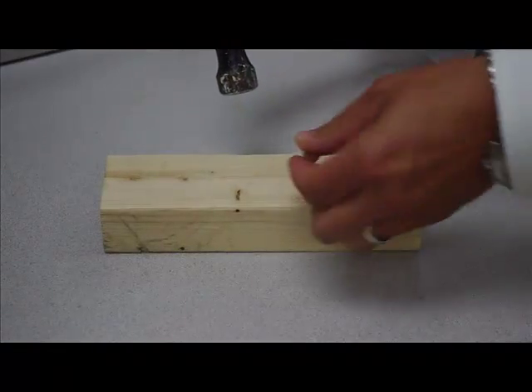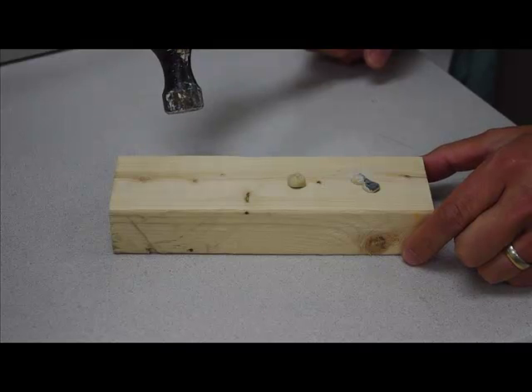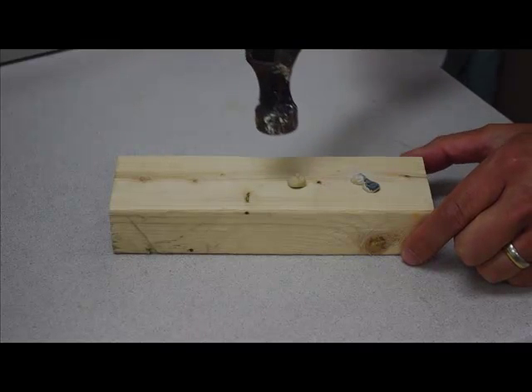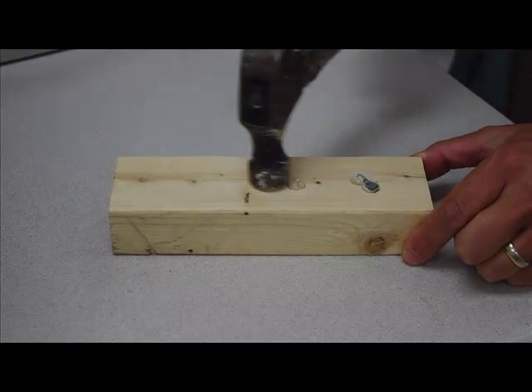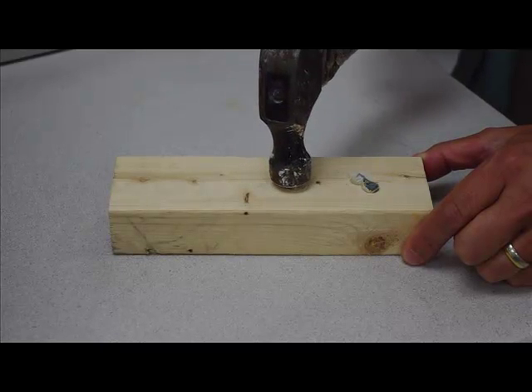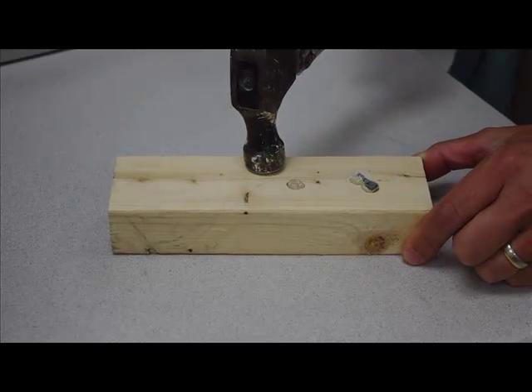Second test, porcelain fused to metal, low fusing, same alloy. That's a fracture. That's a failure.